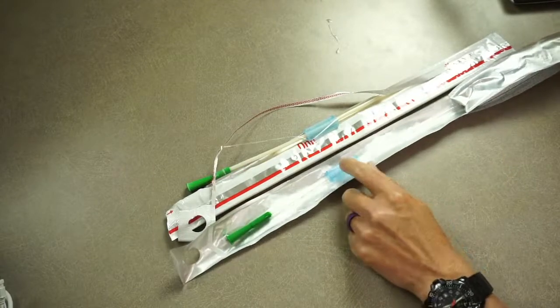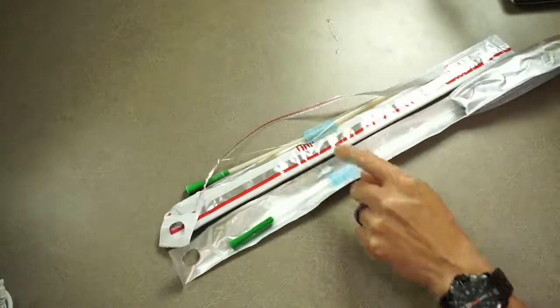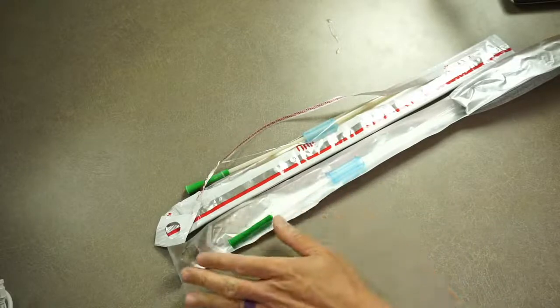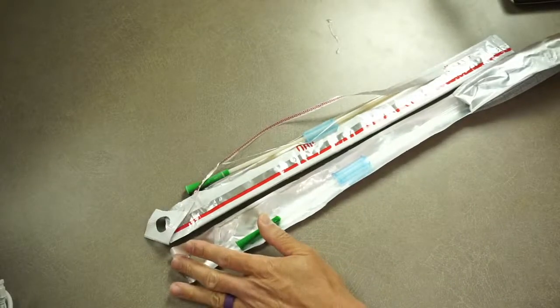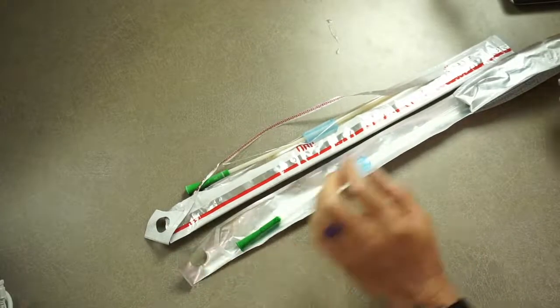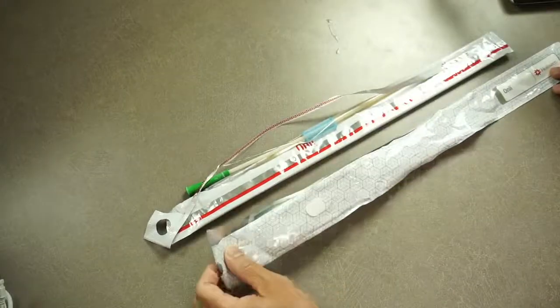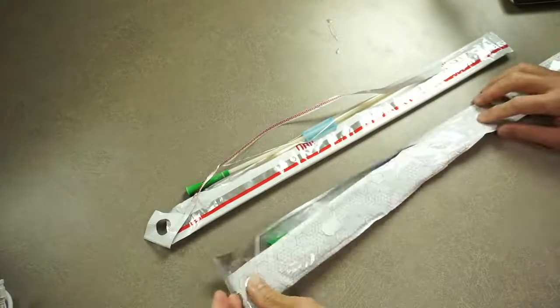This ergonomic gripper is on both the old version and the new version. The packaging is easier to open on the new version. And you think, that's it? The catheter has a hole, that's the improvement? No, there's more.